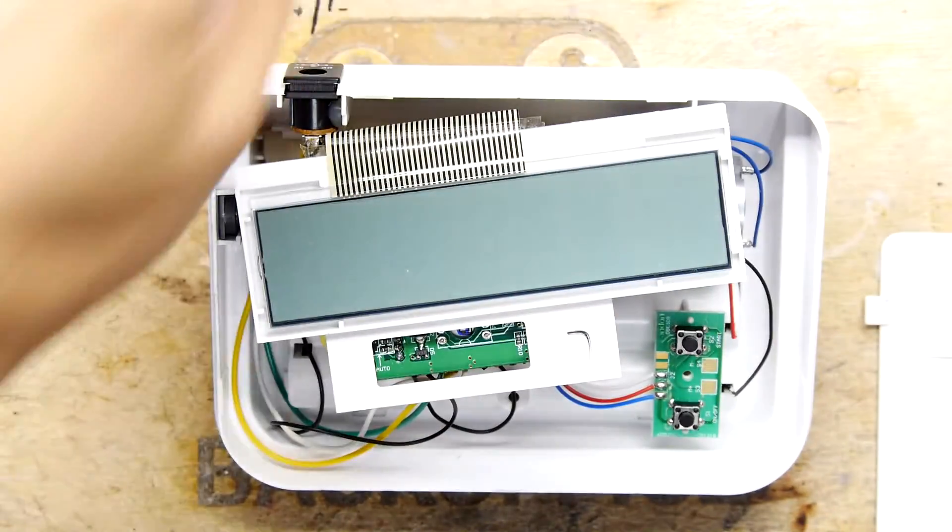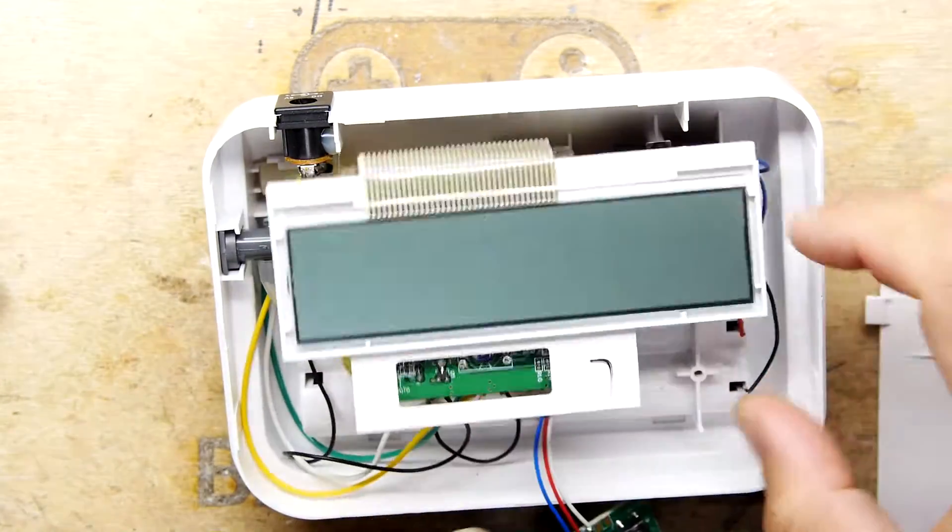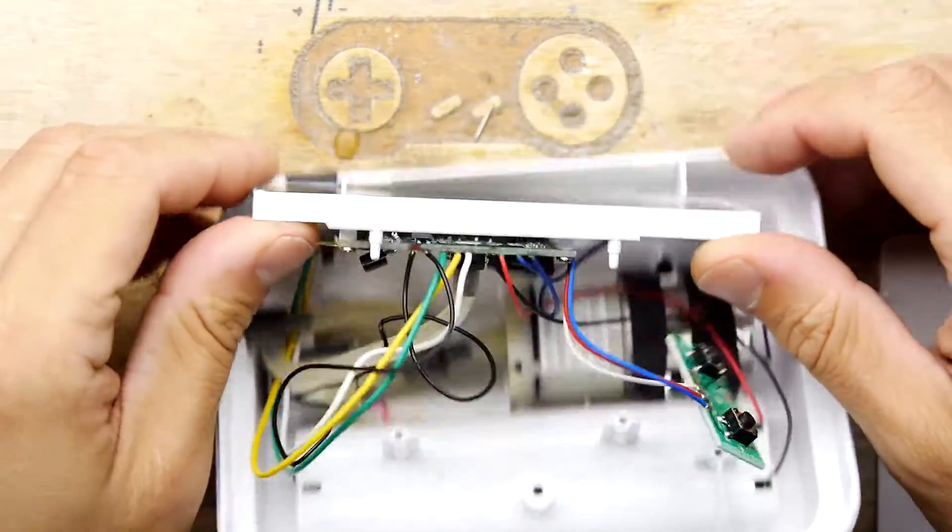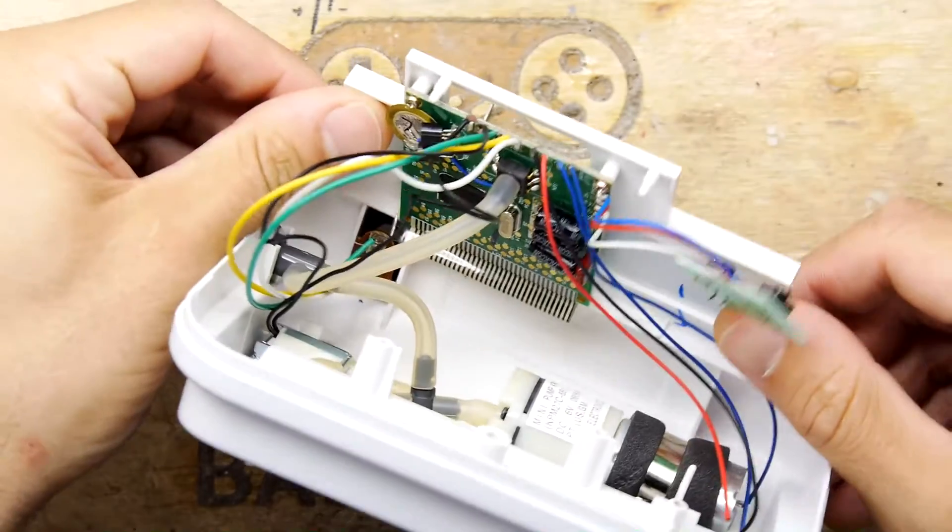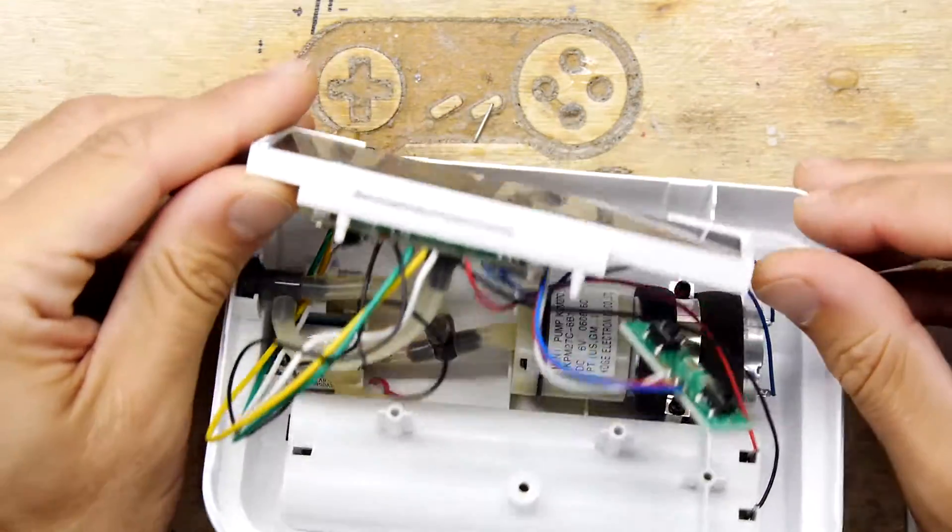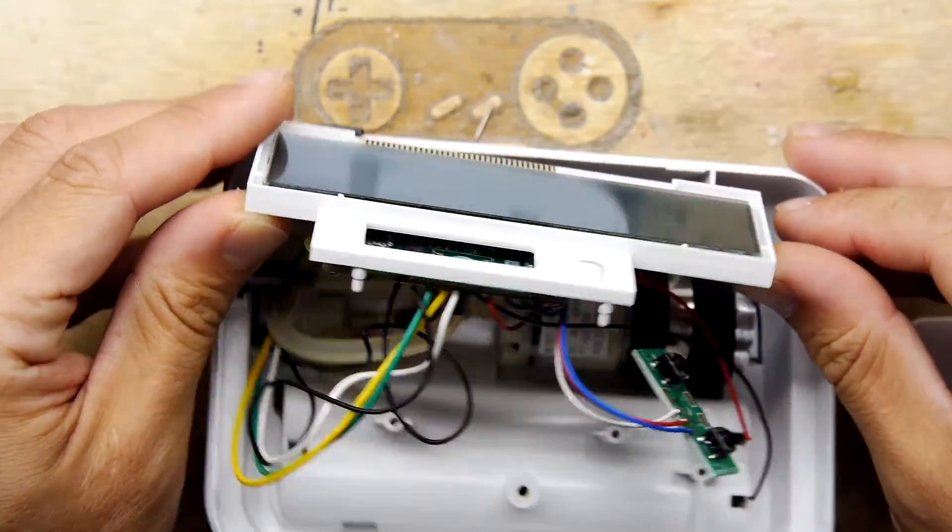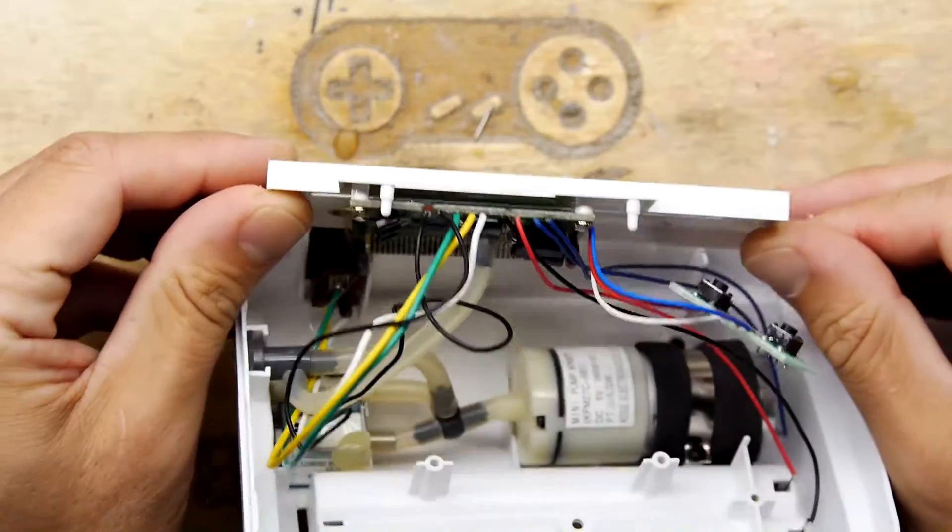We don't really want to break it if it's not broken. Let's keep all the screws in one place. Ooh, look at that. That's cool. Very, very cool indeed.